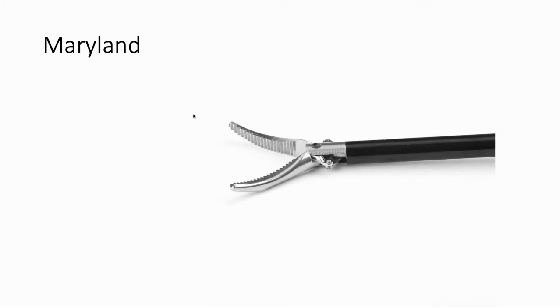That's enough of the open instruments. Now there are just a few laparoscopic instruments that are helpful to be familiar with. First, graspers — essentially just a long stick with a handle on one end and some sort of jaws at the other, with a lot of variability depending on where you're at. Here is a Maryland — not Marilyn as I thought — which is exactly like a grasper but with a finer edge and a little bit of a curve. It can be used for some finer dissection, especially in gallbladder cases or appendectomies. You'll see people using the Maryland quite a bit.